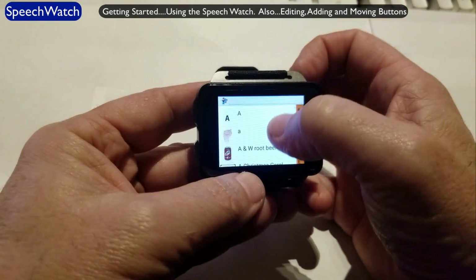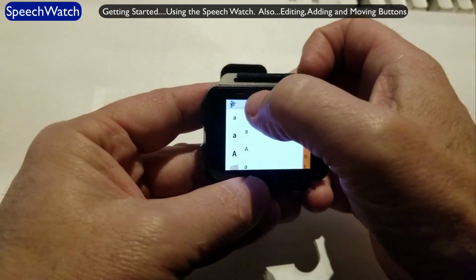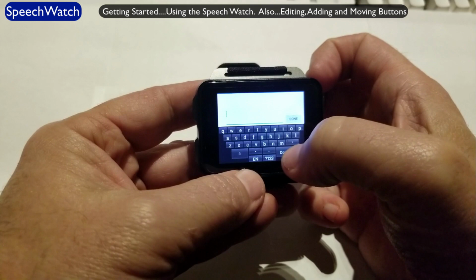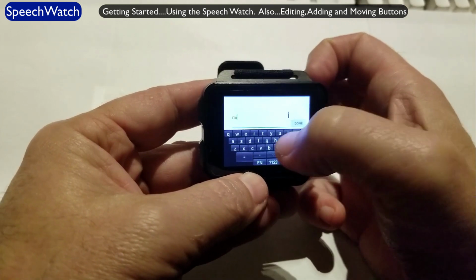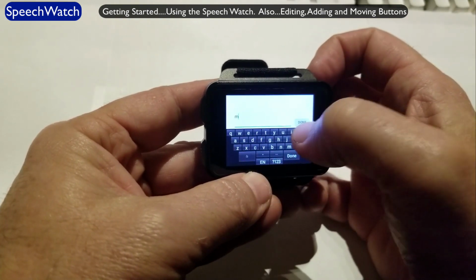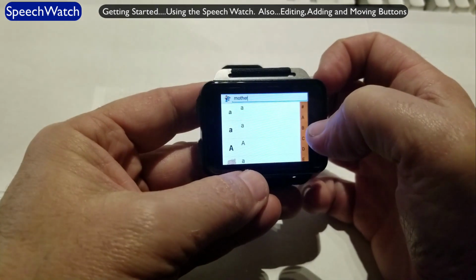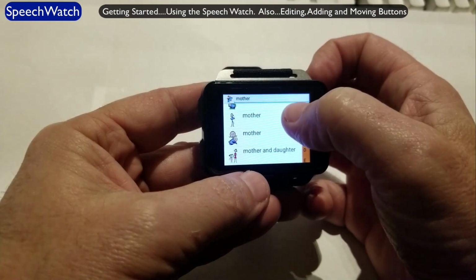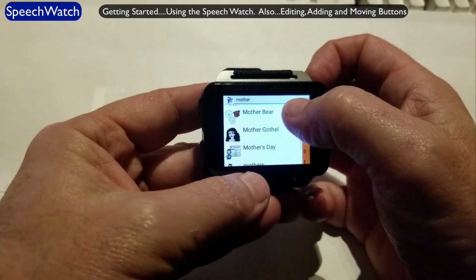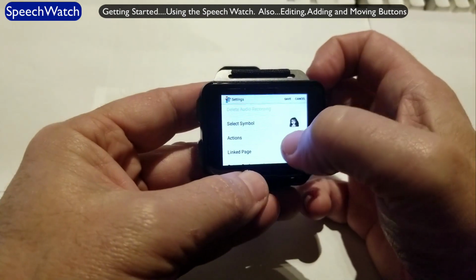And this brings up the complete library of SymbolStix communication symbols. If I touch on the top here, this is my search box. And let's suppose we type in there mother. Oh, correct that. And done. Now it will search for mother. So here's all the options for mother. And you can decide which one you want. This one's kind of fun. We'll choose that one. And there's the symbol. So I have a new symbol.